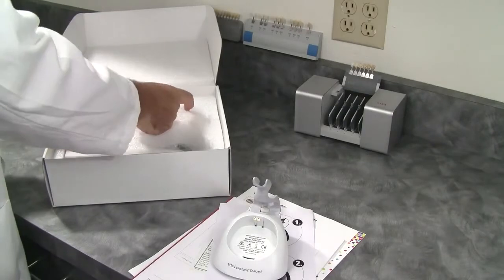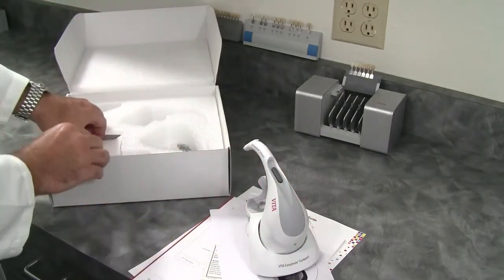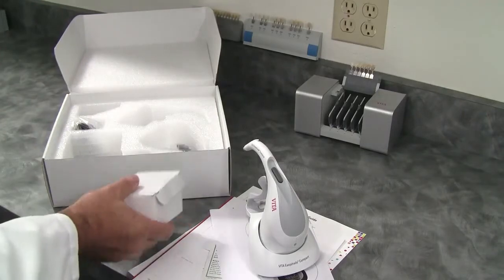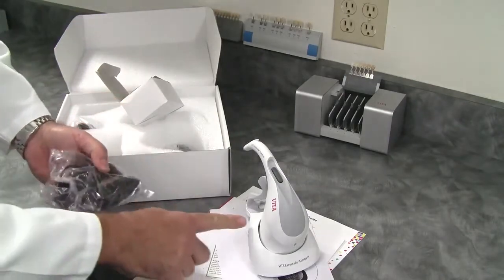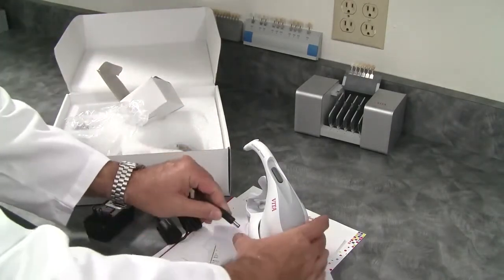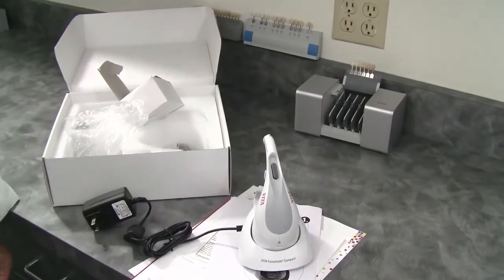The EasyShade proper, which is turned off, and the power accessories which you'll find in the box. You'll be putting on the plug and of course the power cable into the base unit. There is a slide-on plug for the mains, and you are ready to operate.